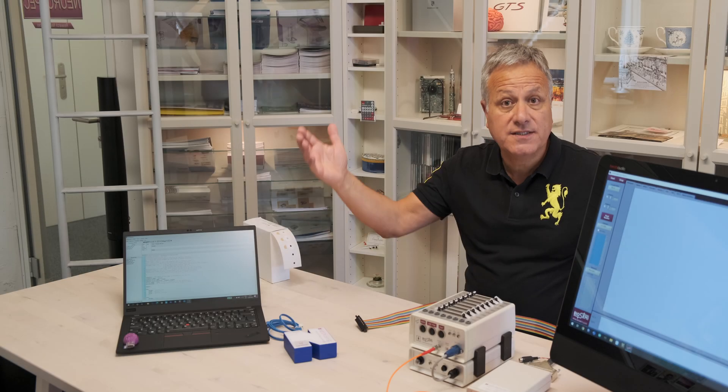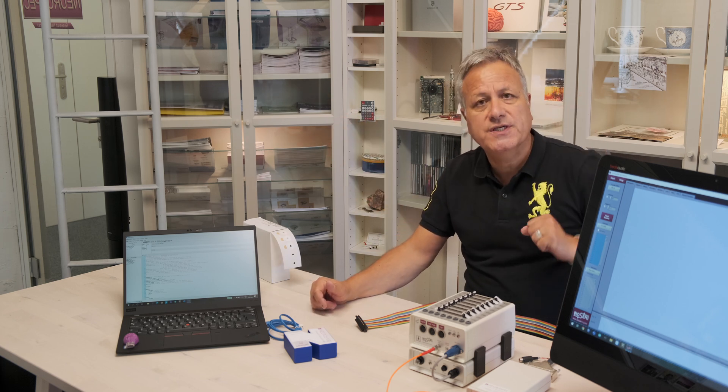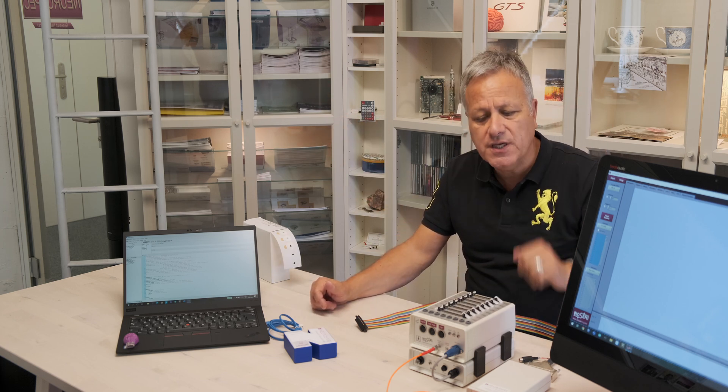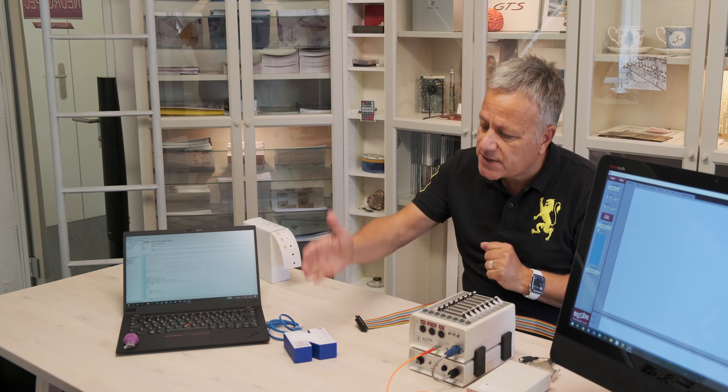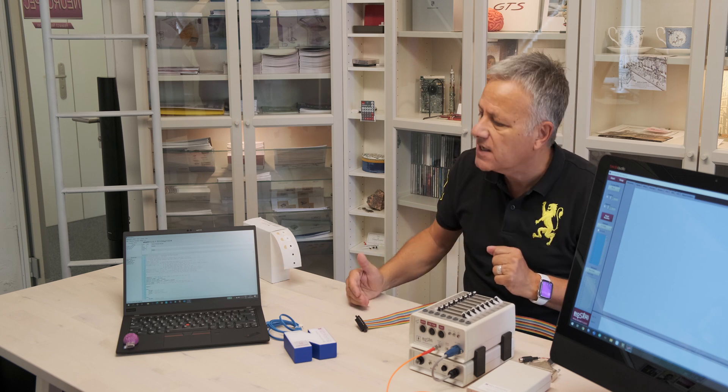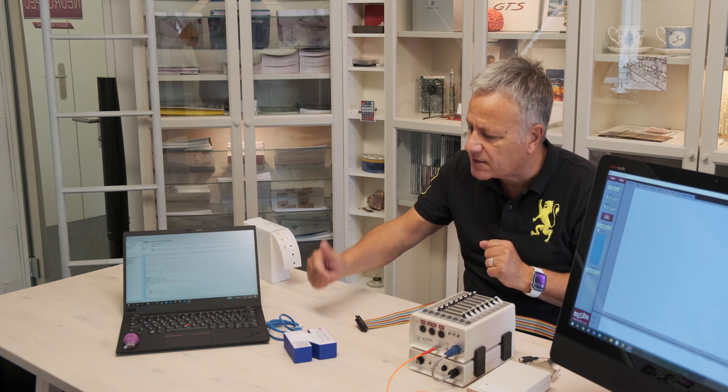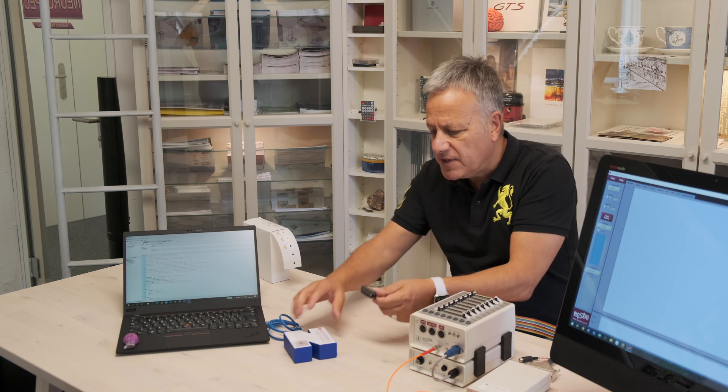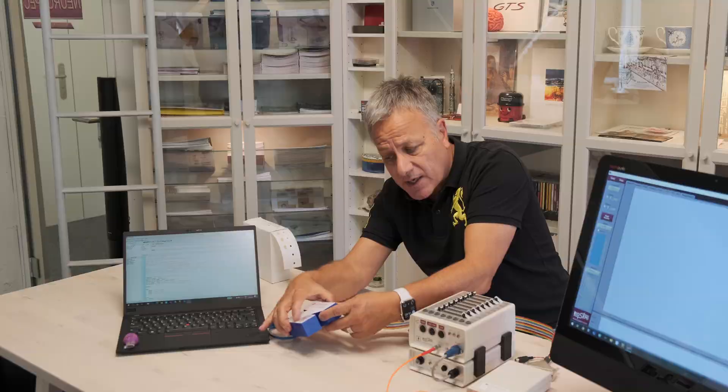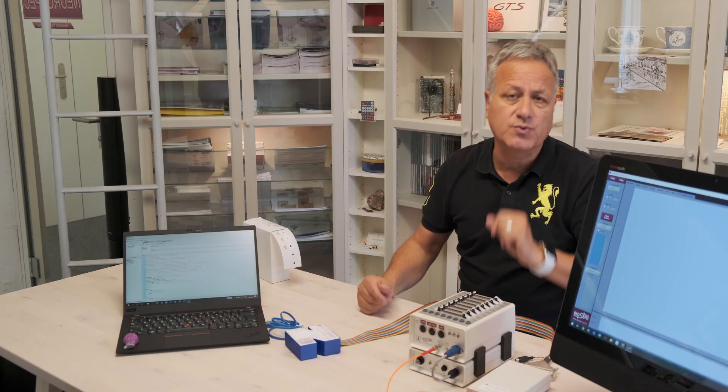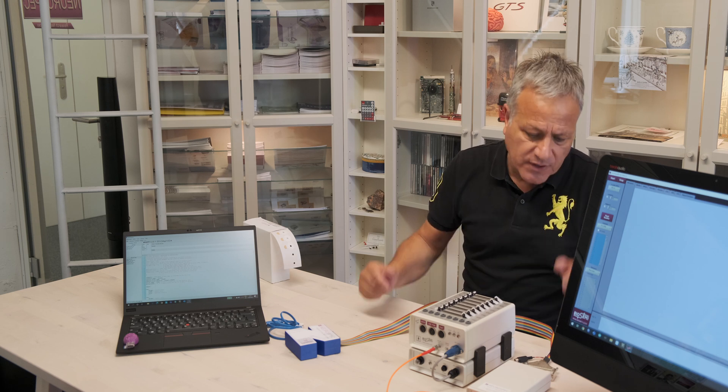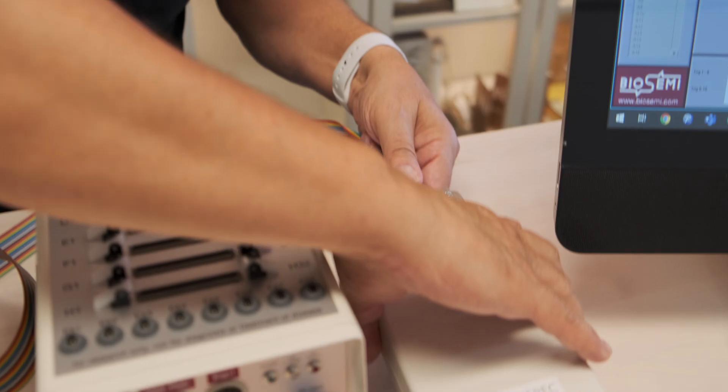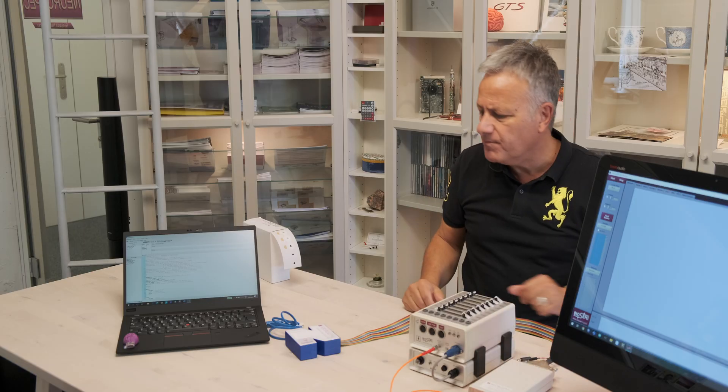So let's connect. We've got the stimulation PC, the acquisition PC, the EEG, and the USB receiver box. The first thing we'll do is connect these things together. The MMB trigger box is already connected through the USB cord. We have the trigger cable which is essentially the same trigger cable as you have in your lab, except this one is modified—and again it's not to be replicated. So we connect the USB receiver to the trigger cable.